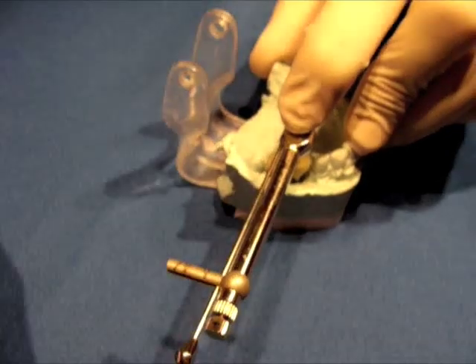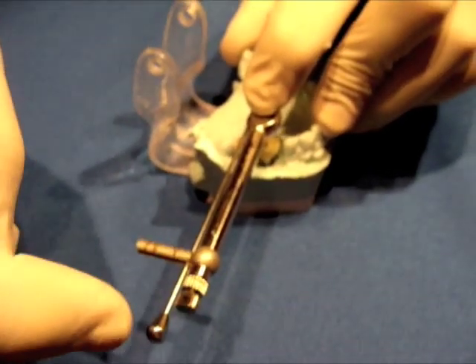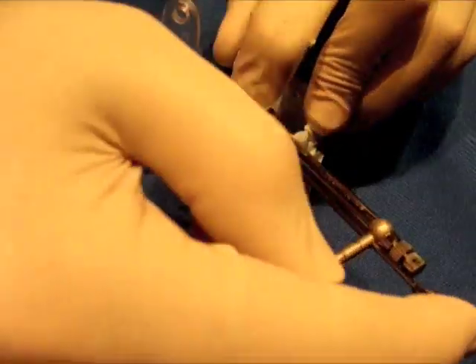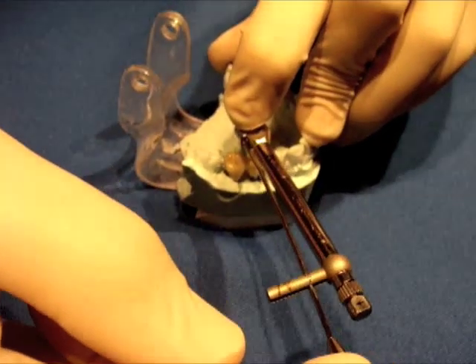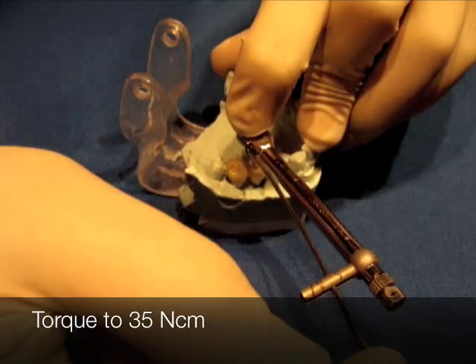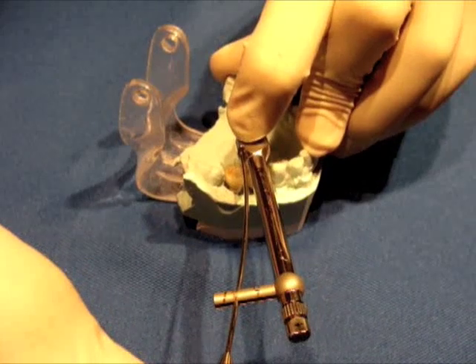When I put this in, I know it's going to be functioning right. What I want to do in the mouth is hold one finger on top, have the other finger down here, making sure that the arrow is pointed in the same direction that the torque arm is. As I go back and forth, you can see it's clicking in and engaging, and we're now at 15 newtons. As I click back, I can tighten this down all the way to 35 newtons.